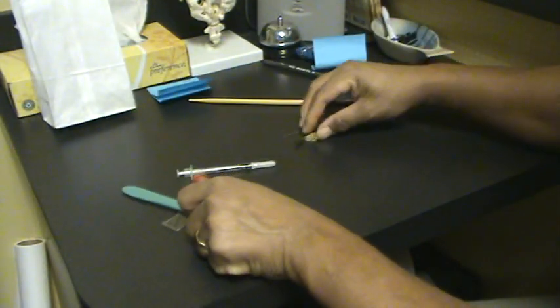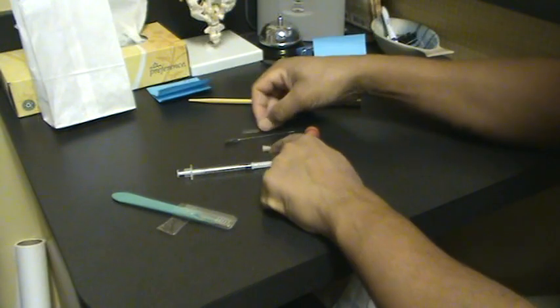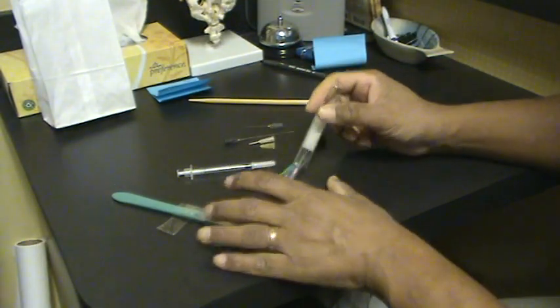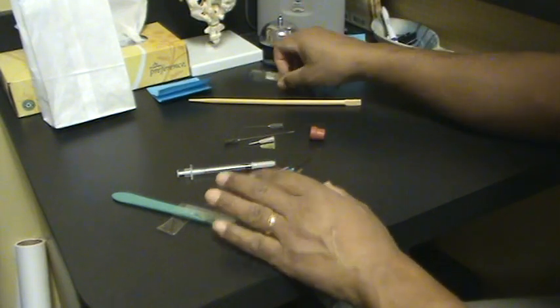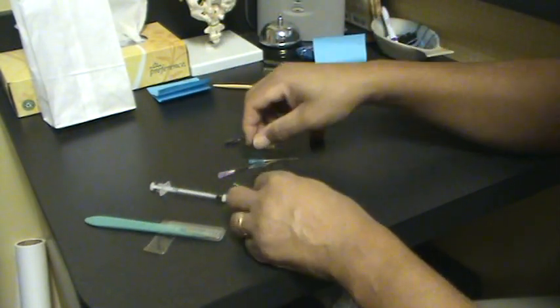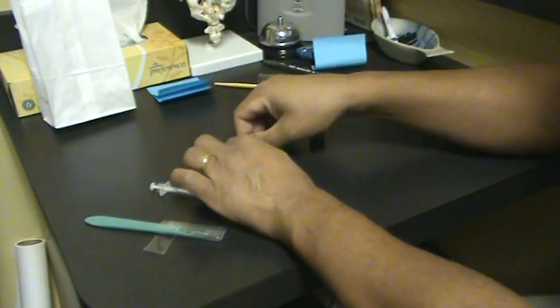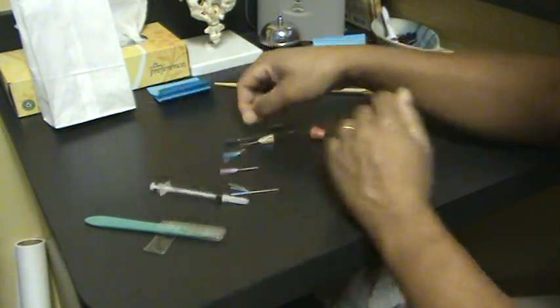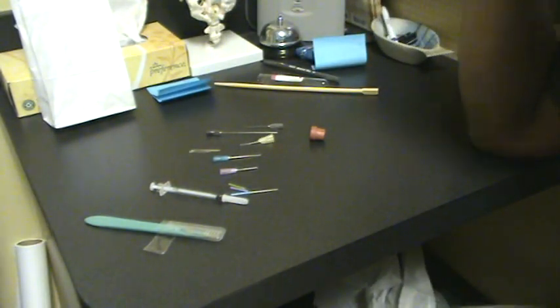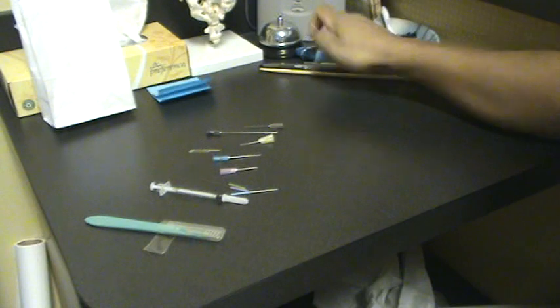All these are tools — tools of the trade. Just like if you're a carpenter or a mechanic and you had a set of screwdrivers, you would choose the particular screwdriver for a particular screw.